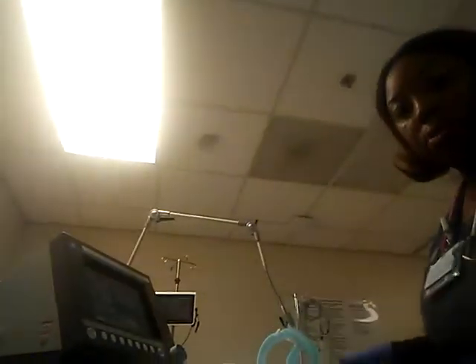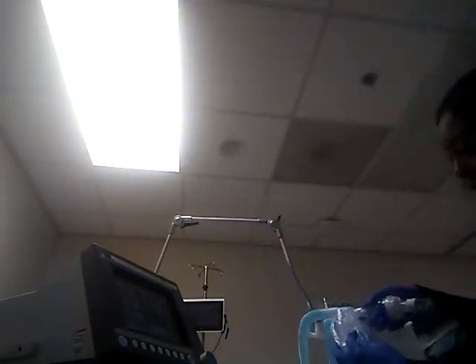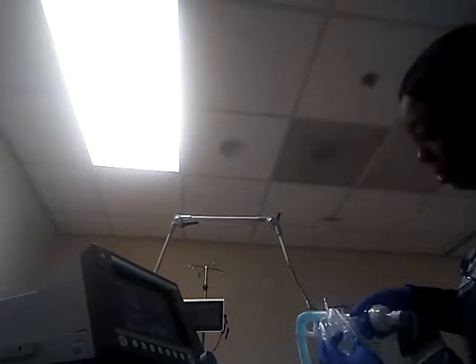So in order to give that treatment, turn it a little bit so you can see. I don't actually have one open. This is our neb setup. We would still have to place our medicine inside of our neb setup. We're going to place it on the bottom here of this adapter. That's where our neb will go.